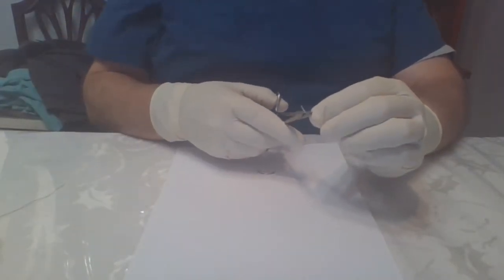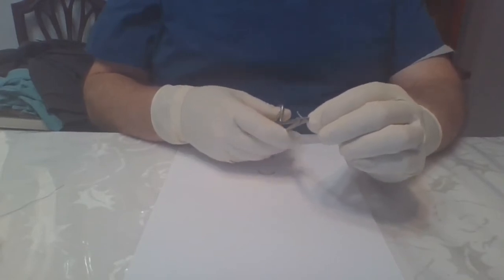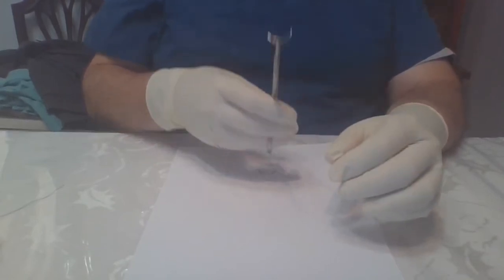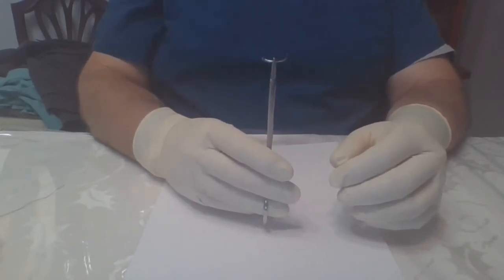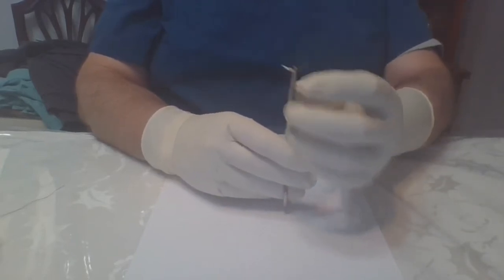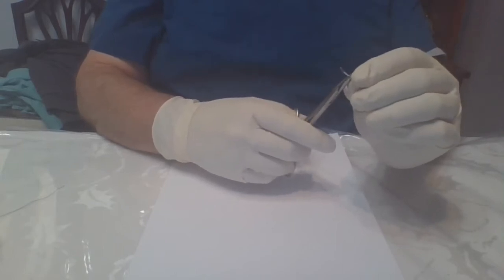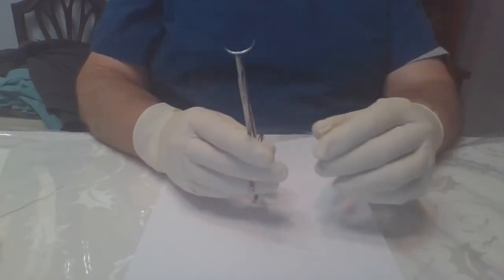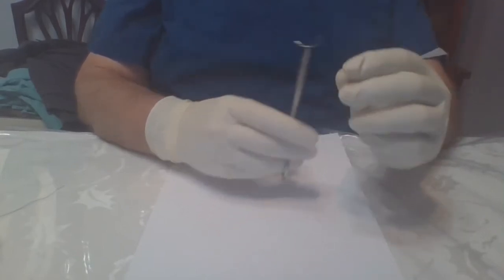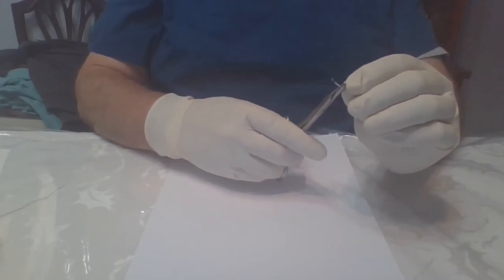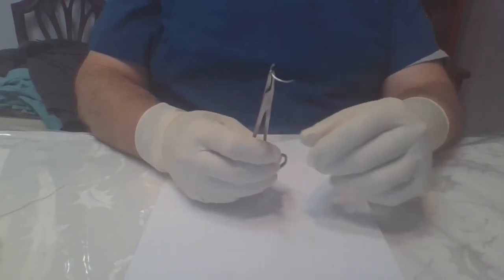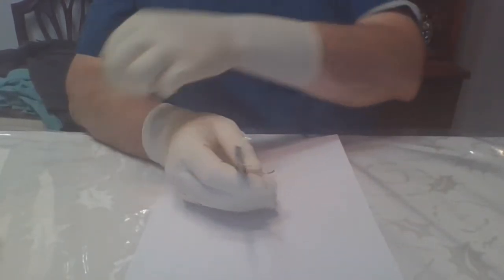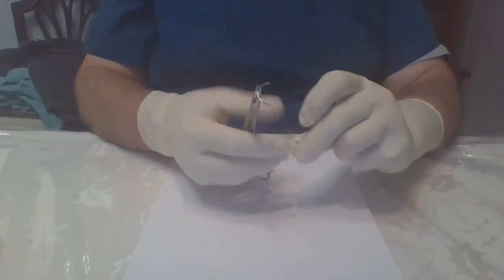I'm going to load this pretty much standard at two-thirds shank, but with a free needle or an odd needle it's good to have a little bit extra left. A little bit of space here at the top where most of the time I lock my needles to be right at the point is my preference. For a free needle you need to give you a little bit of a space up there as the suture material is going to go through that. All right, now I'm going to grab a piece of silk tie.